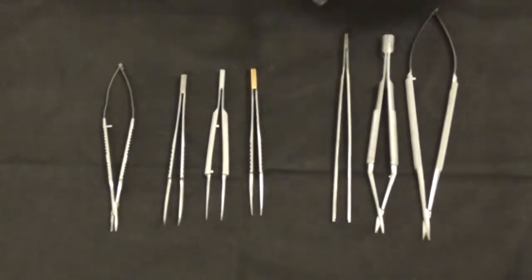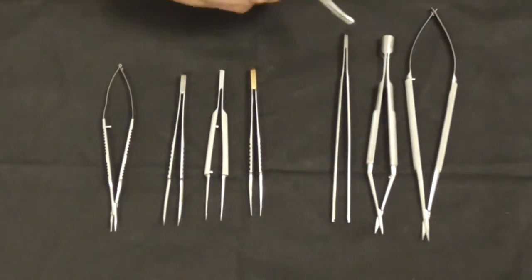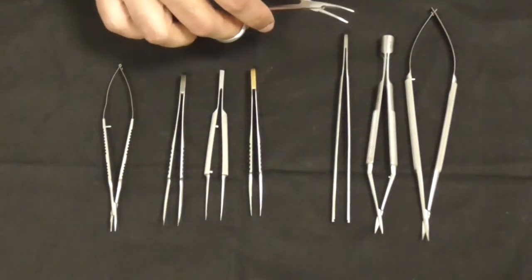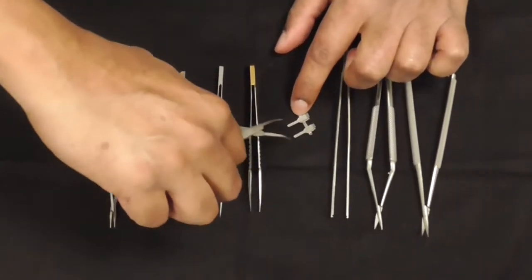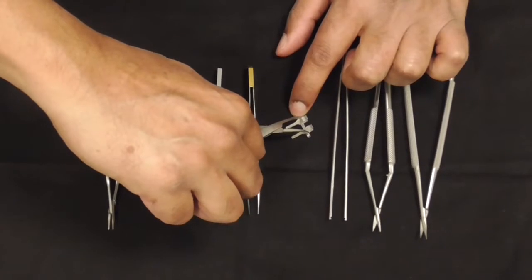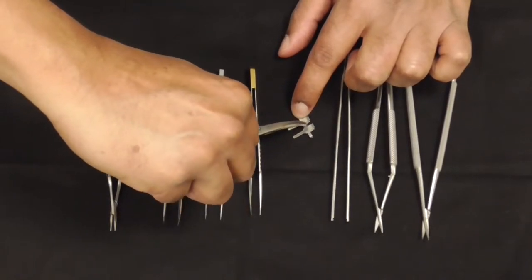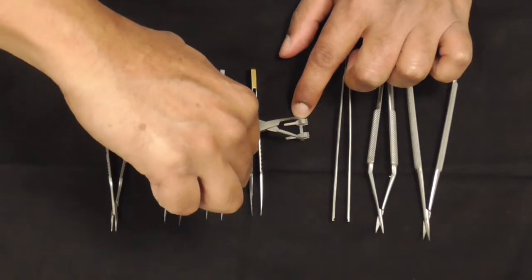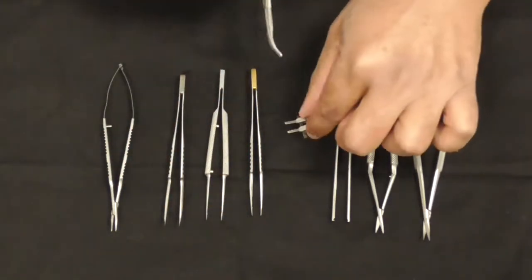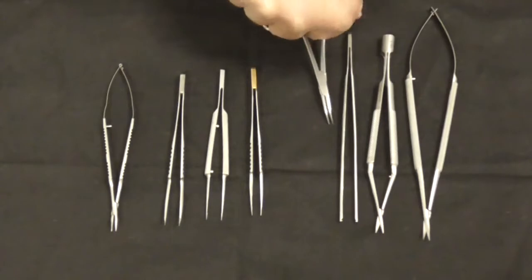We have an artery clip, which is useful when you have a double clamp. You put your vessels in to bring the vessels to approximate them to the optimal position or spread them out. The artery clip works very well for that sliding mechanism.